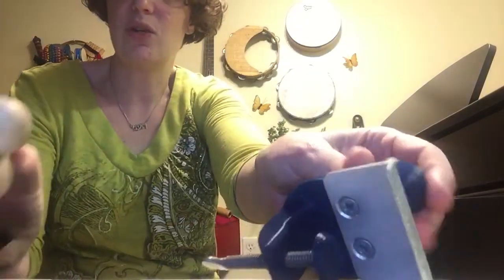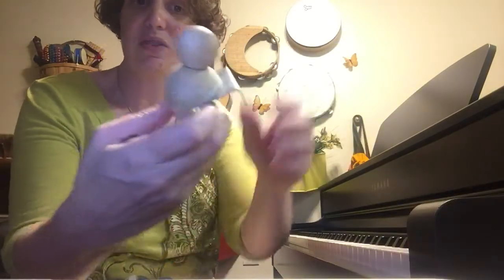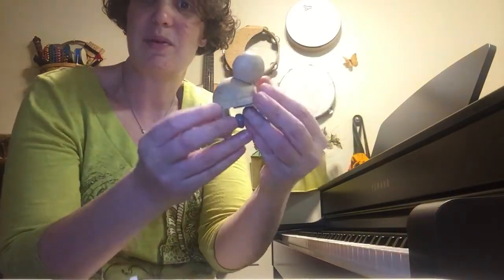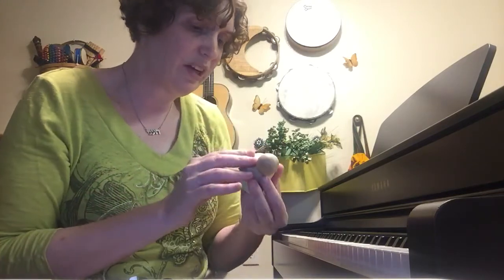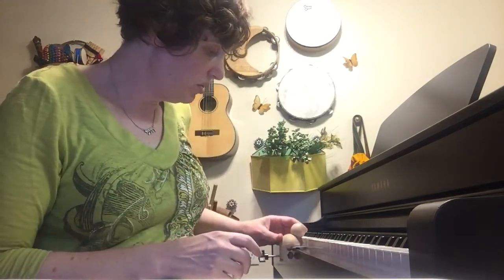Then I upgraded to the wooden one, which you can see right here. The wooden one is prettier, cheaper, and a lot more sensory effective for those who have aversions. So we have the wooden one—it goes right onto the piano, and the hand goes on top of it.